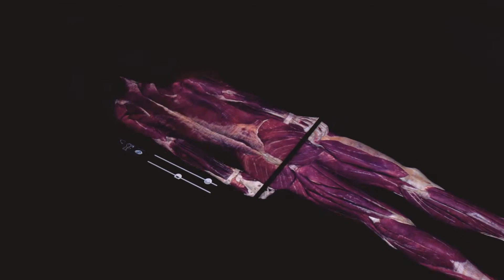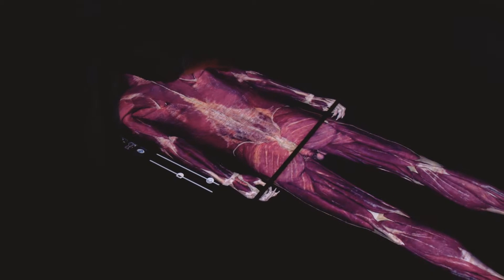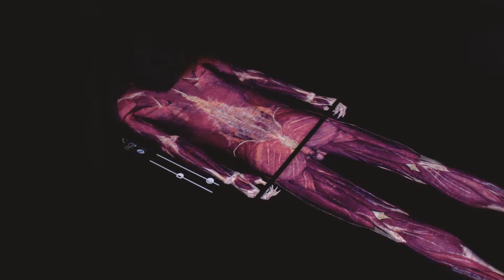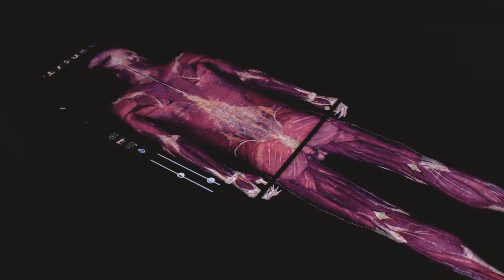With just a touch of a finger you can rotate him around like this and look at the anatomy of the back. If students were first studying the back, you'd go through and be able to identify all of these different muscles.